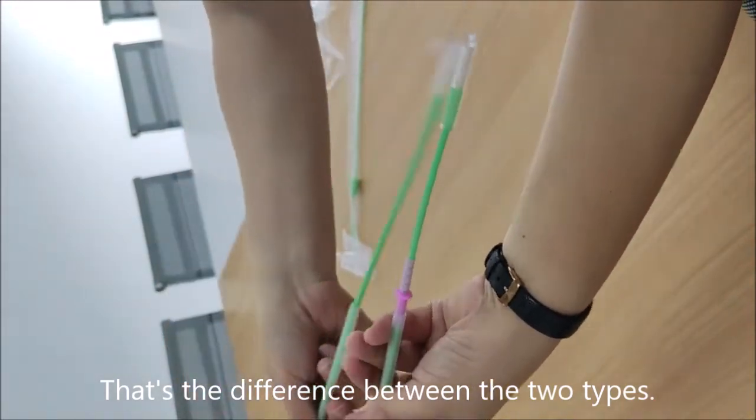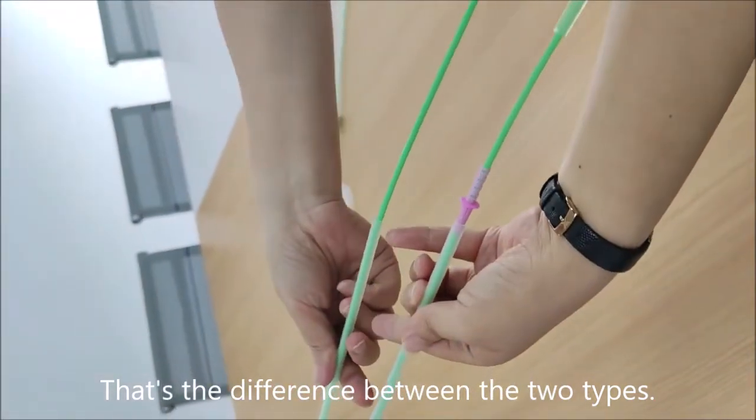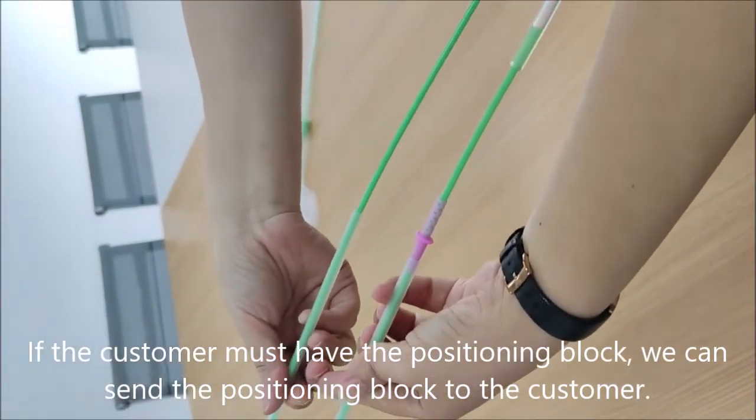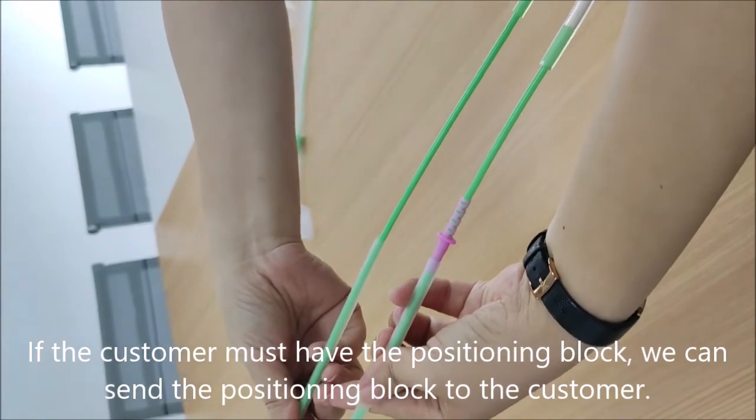That's the difference between the two types. If the customer must have the positioning block, we can send the positioning block to the customer.